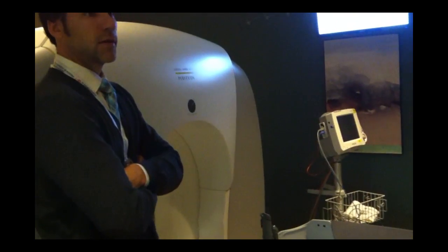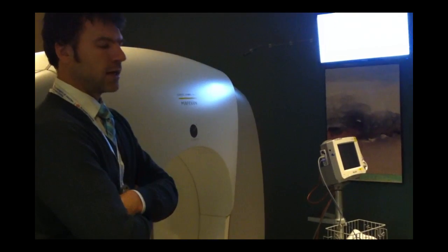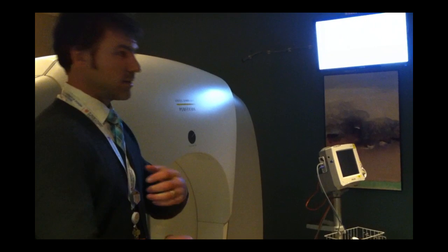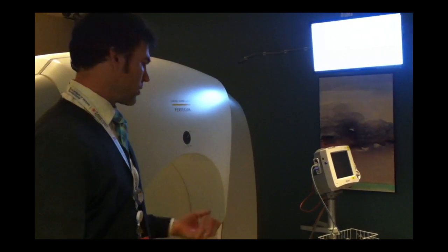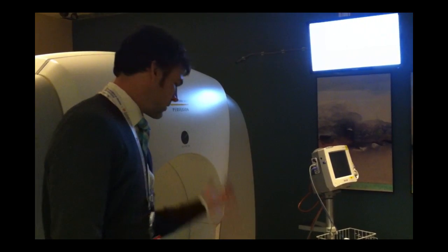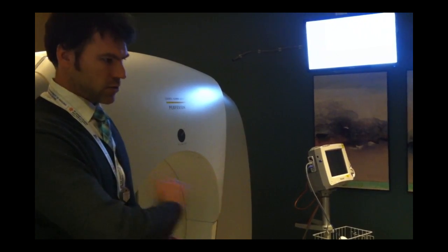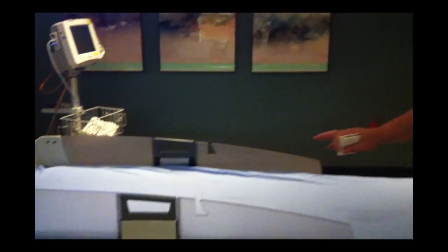Sneezing doesn't do anything, but if the patient gets moving a little bit, the machine senses it and throws an error, then drives them out of the machine.